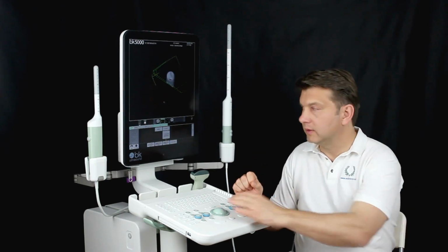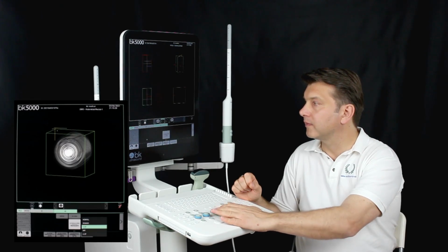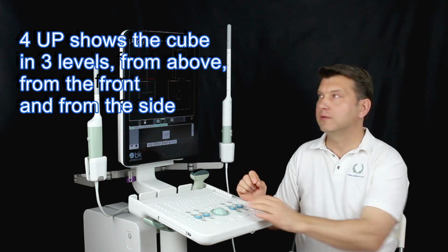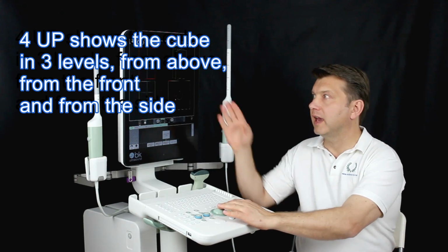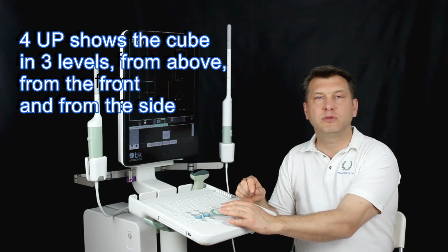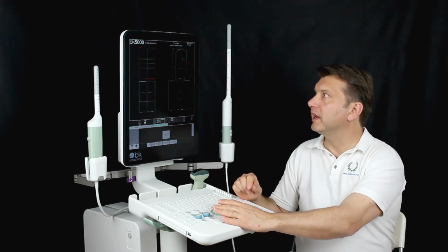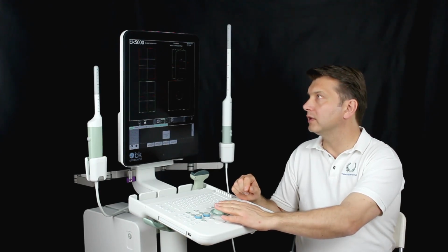Four-up mode. We can find it here. And it shows the cube in 3 levels: from above, from the side and from the front. All these levels can be moved freely and independently of each other. For that purpose we go to the plane, click on this and move it as we want it.